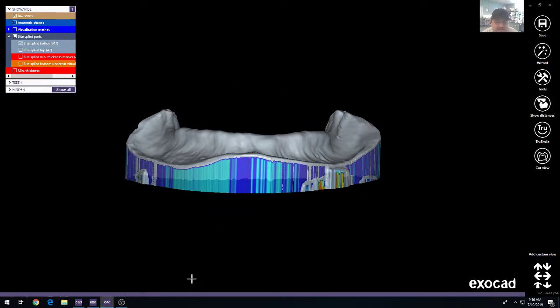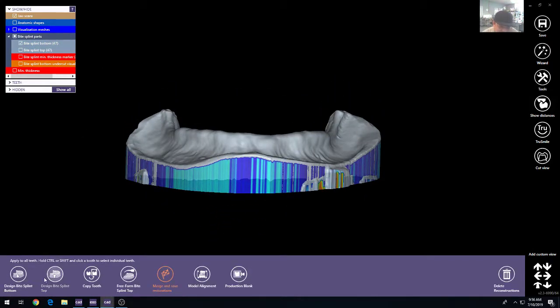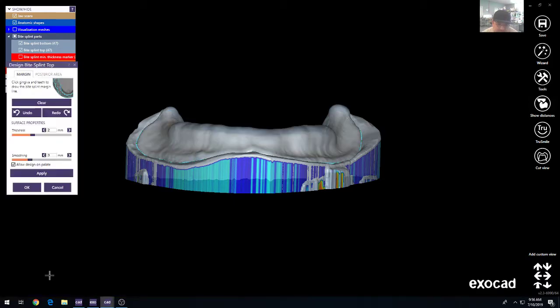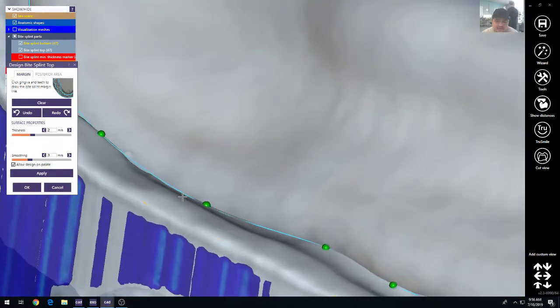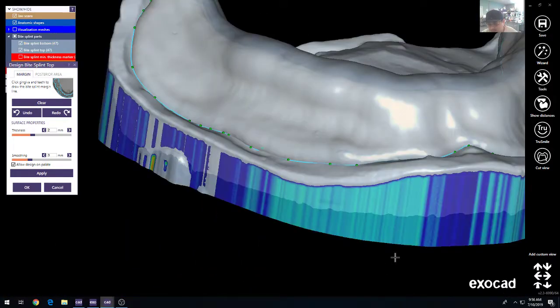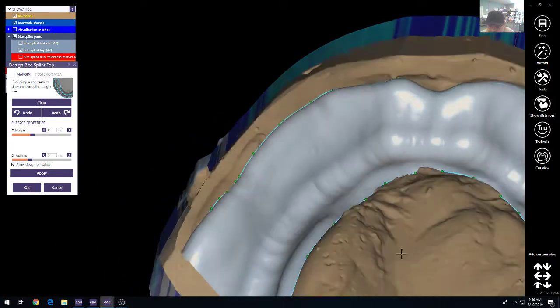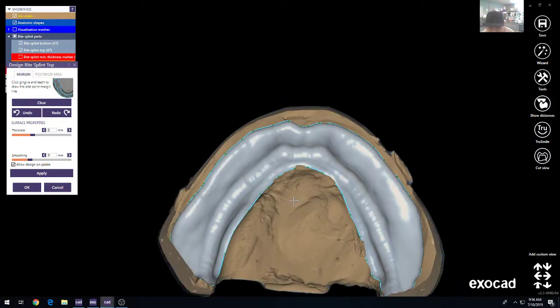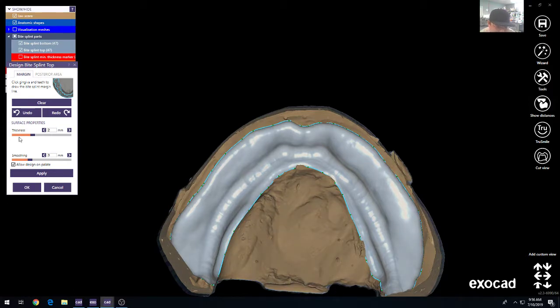Once you have this Bitesplint bottom, the next step is to design the Bitesplint top. That's basically done by clicking on your surface. A good trick is to come over here to the bottom side of the scan, flip it over, and then you can draw your baseplate border. You can then set your thickness and also your smoothing settings.